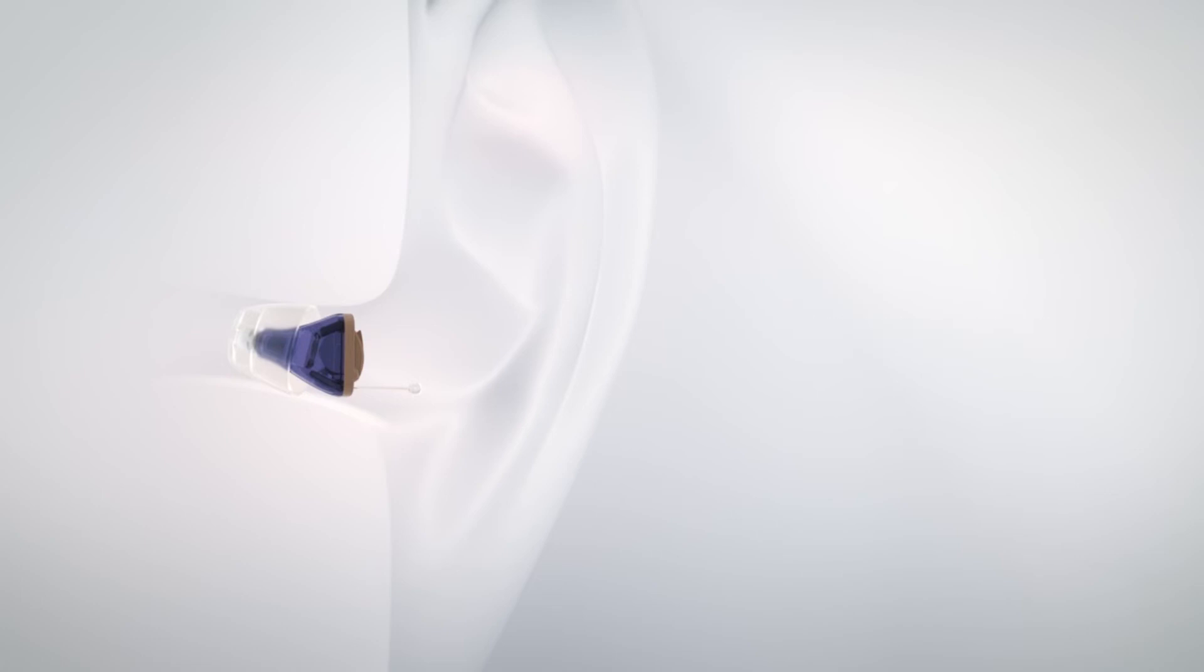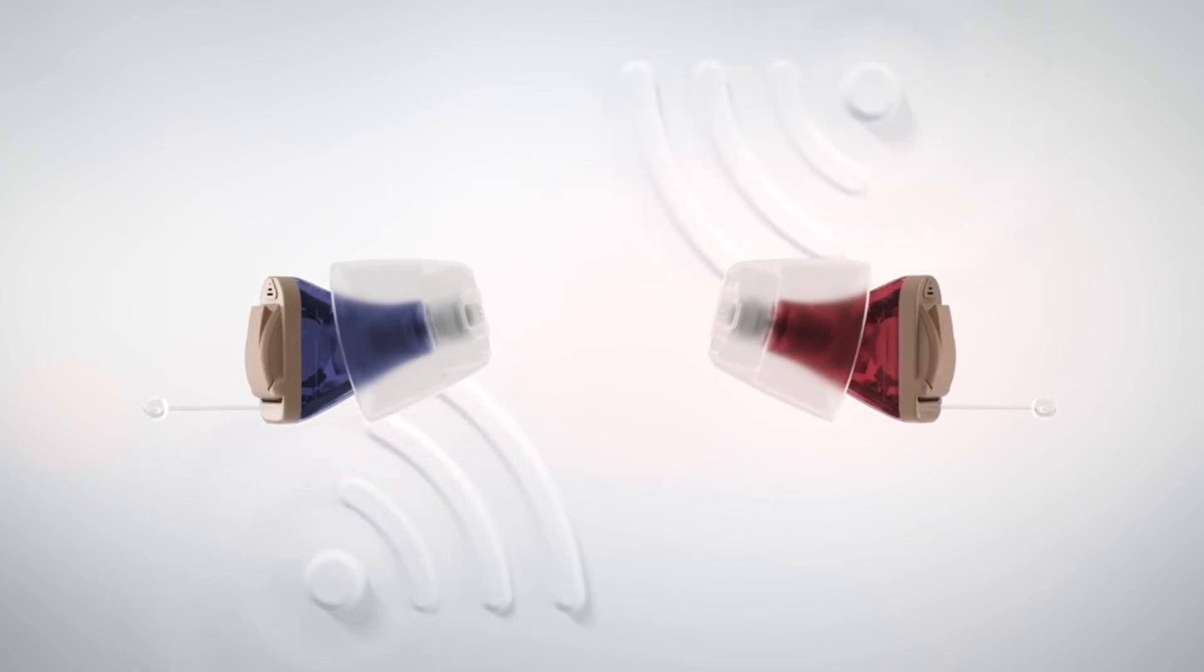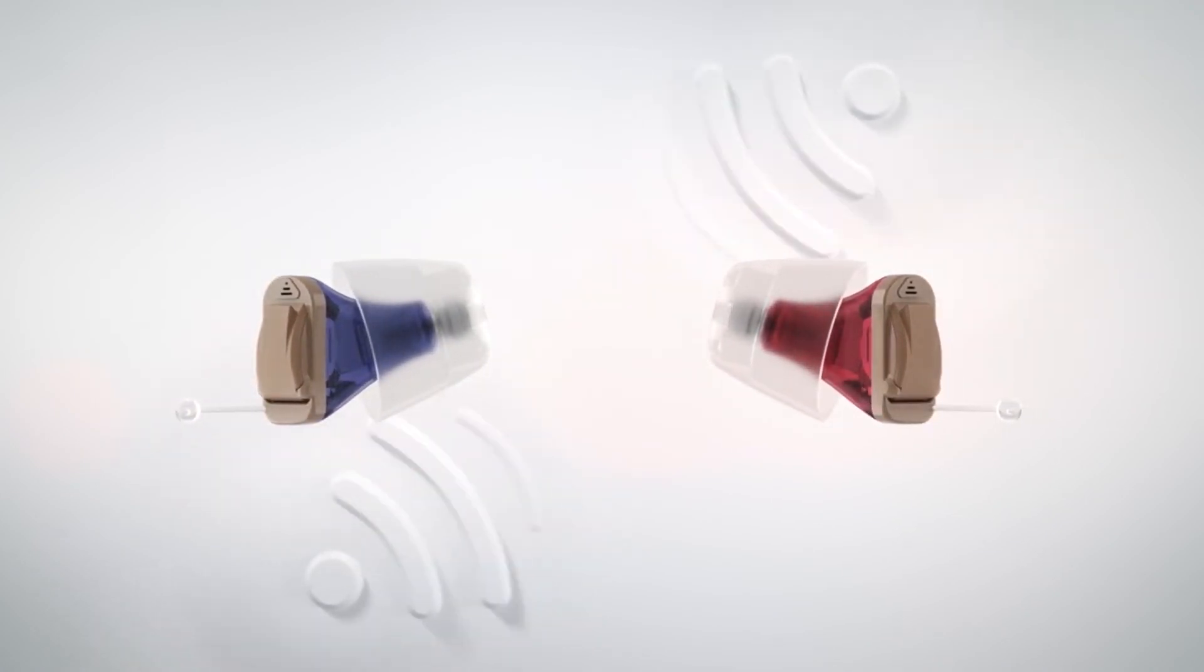Despite its small size, it contains the complete Primax technology, including full wireless and binaural features such as binaural one mic directionality.